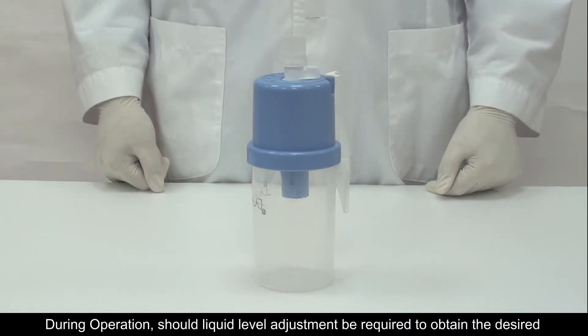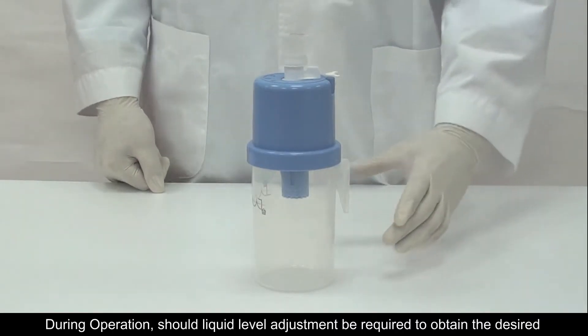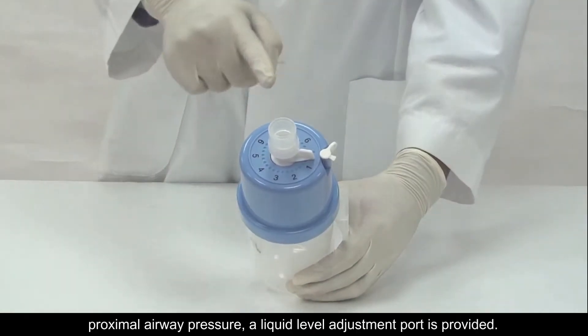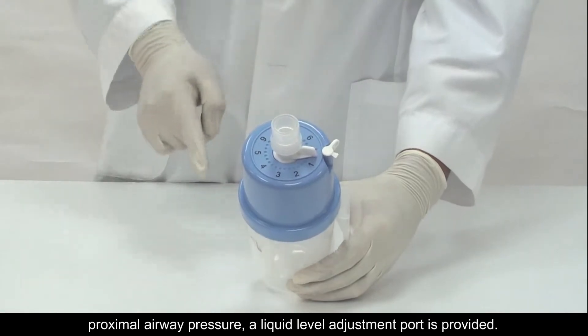During operation, should liquid level adjustment be required to obtain the desired proximal airway pressure, a liquid level adjustment port is provided.